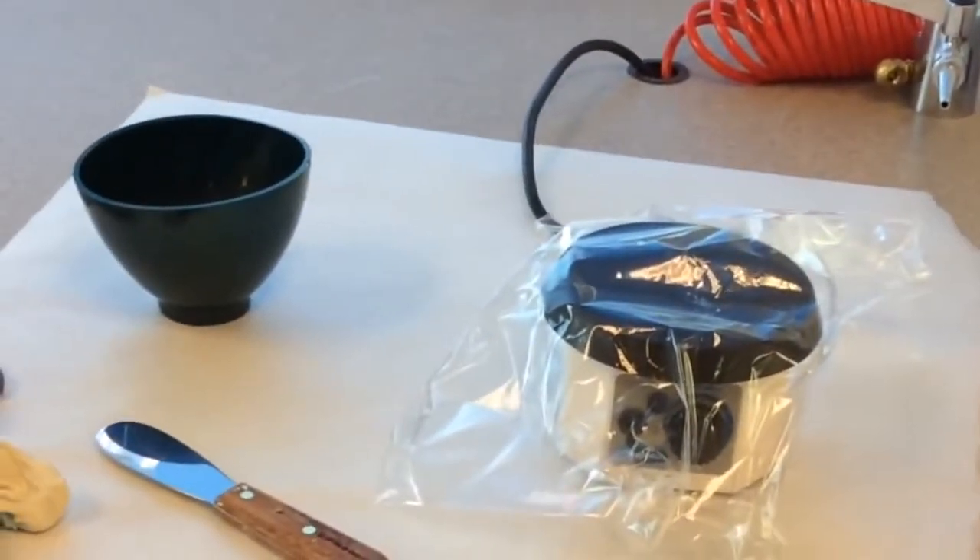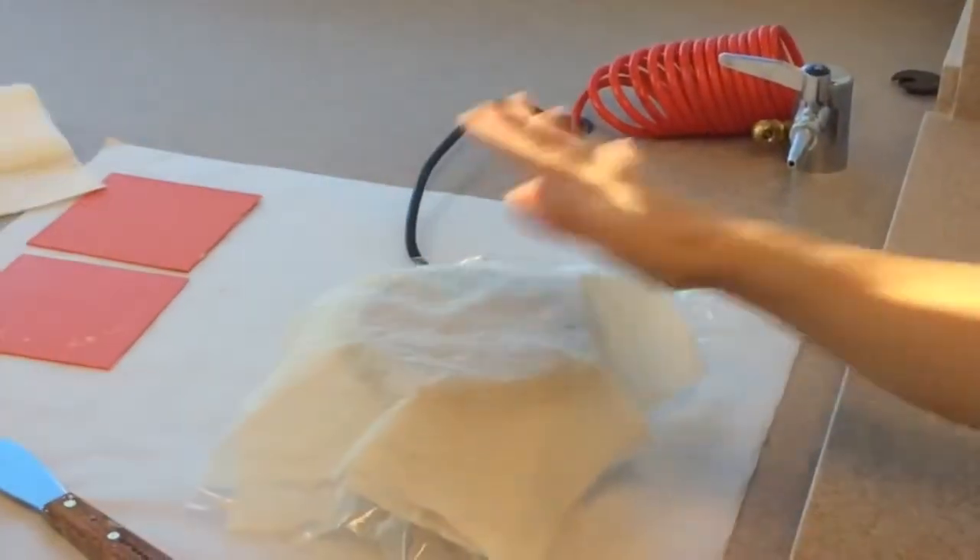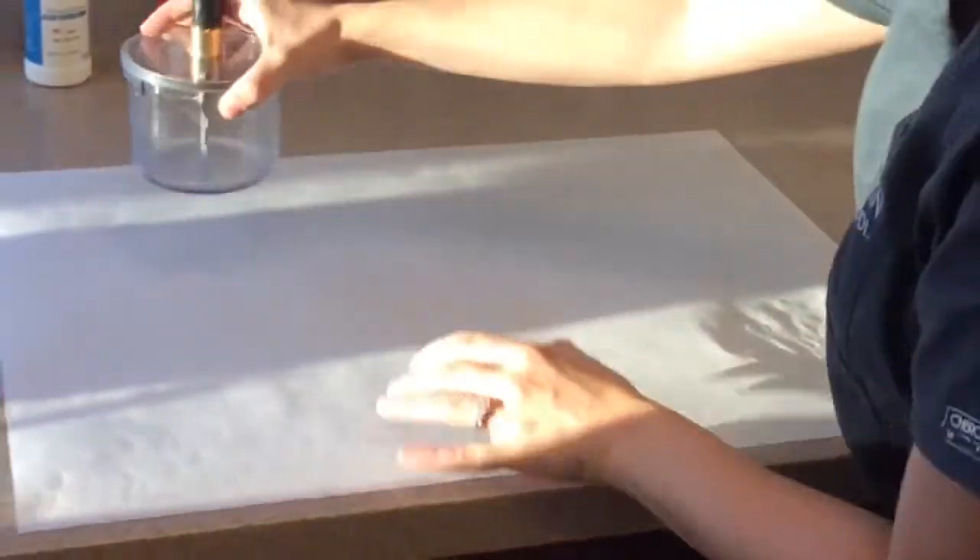Now it's time to pour up your impression, little D1. This is the wet lab. You'll need to prepare your materials. But first, put down a clean piece of paper — you don't want to see the professor's mat. Also, cover the vibrator pad with a wet paper towel. This all helps with clean up.